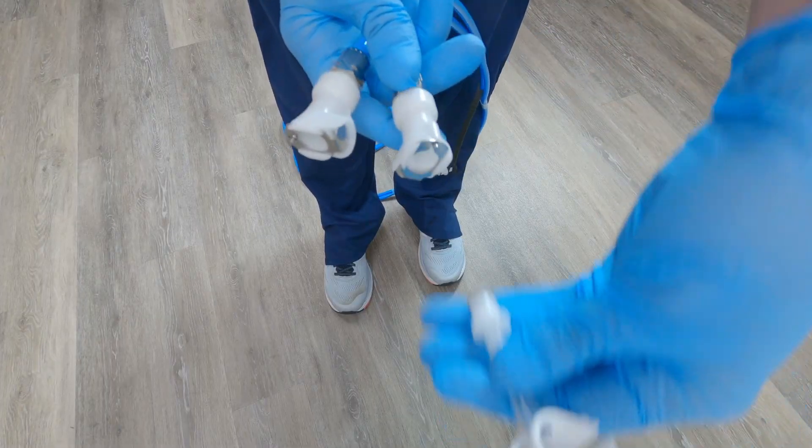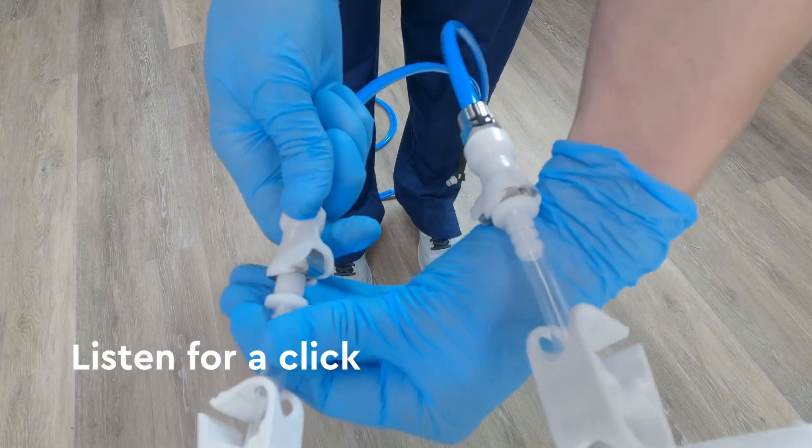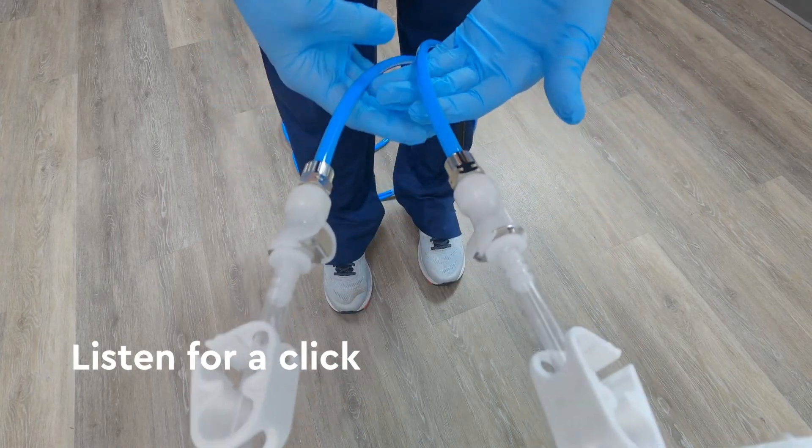Next, connect the wrap to the other end of the hoses, connecting plastic to plastic. Listen for an audible click each time.